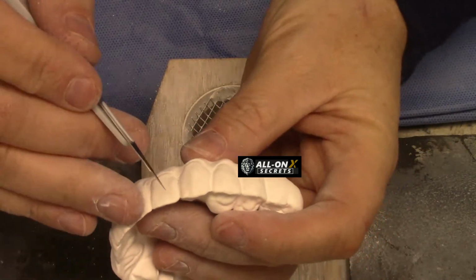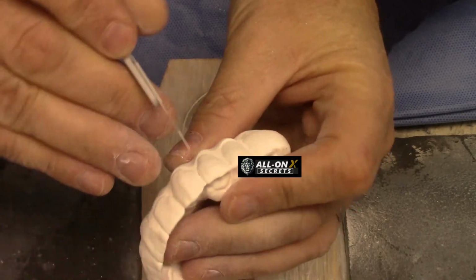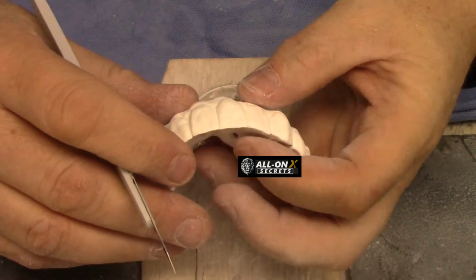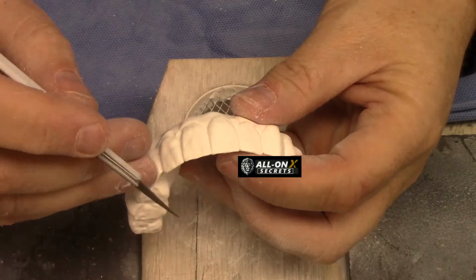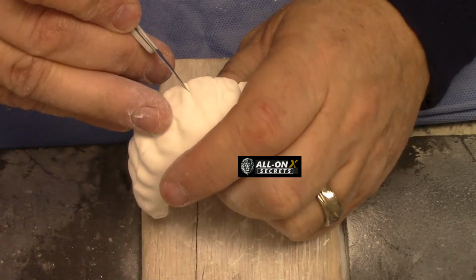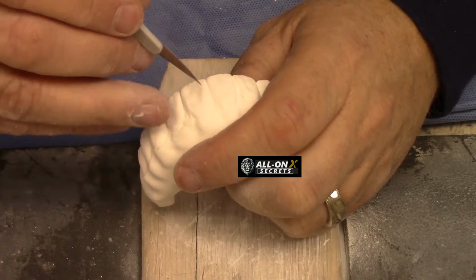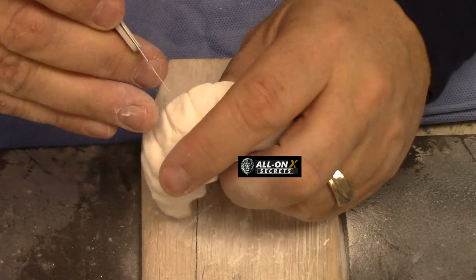But I like it. I think this is the fun part where you can create a little bit more separation. What you're looking for is to make it look really real. You're really looking for a shadow to develop in here. When I've seen things I don't like, and I think they look kind of fake, it's because typically the mill mills it too flat, and so there's a flat edge here, so you can see it. They're not like it's a bridge.